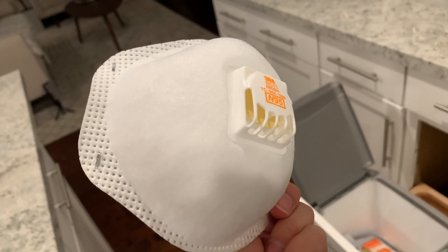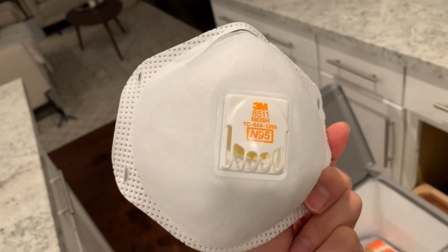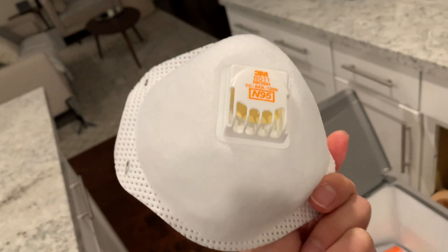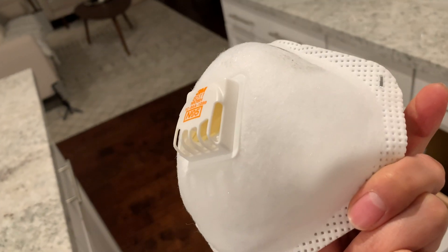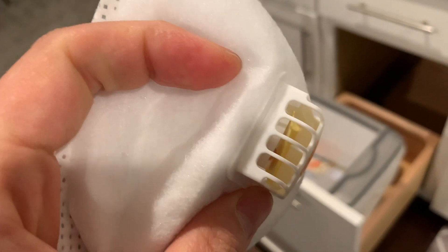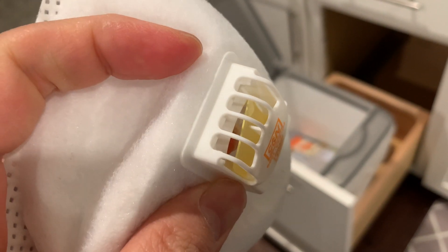What if when the valve is open and somebody tried to blow mucus onto your face accidentally? That would be kind of problematic, right? Let's say somebody tries to blow mucus onto your face — if I put my finger and pry through the hole, it basically creates a gap.